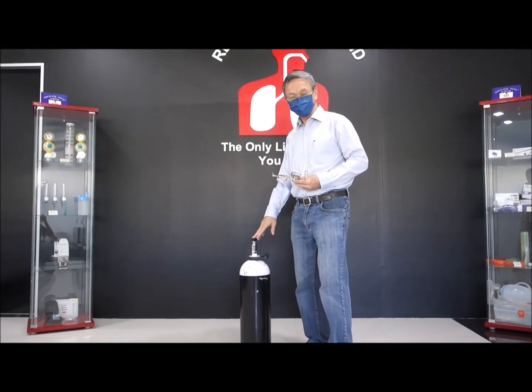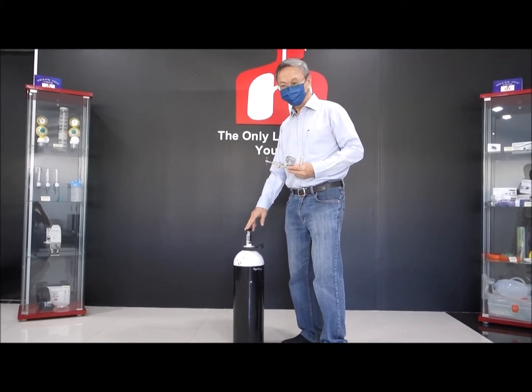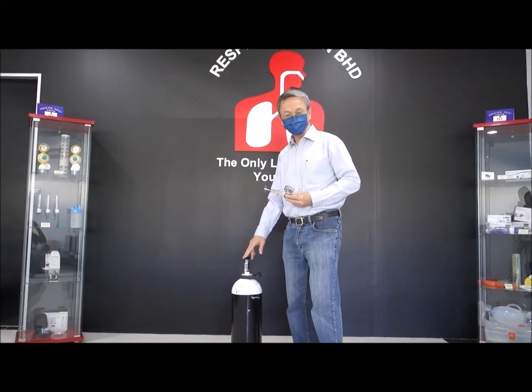The oxygen therapy set. This is the high pressure oxygen therapy set. It's very important, it's safety.